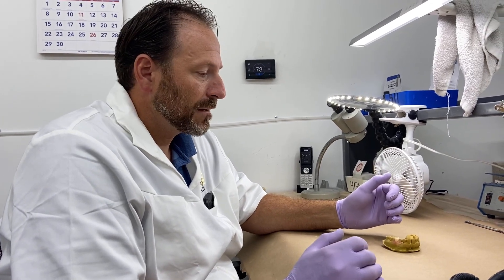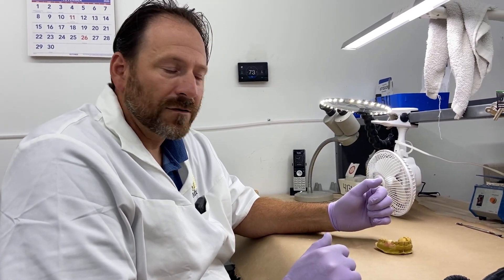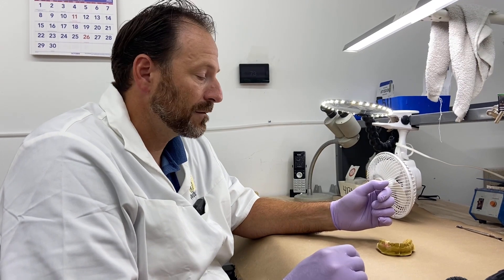If you have any questions, contact Meyerson. Usually they can get me on the phone and we'll get you going straight on this. You also have the ability to make frameworks with this if you have limited occlusion. The acetyl is a nice option for that because they're tooth-colored and you can make the tooth and a whole partial out of that material. So we have options available as a company.